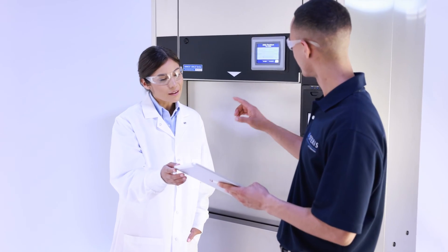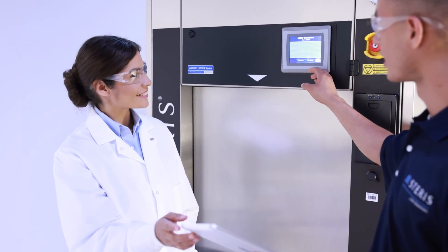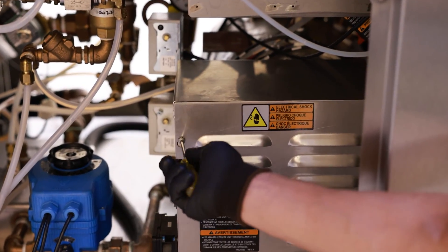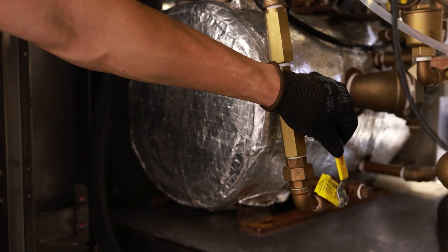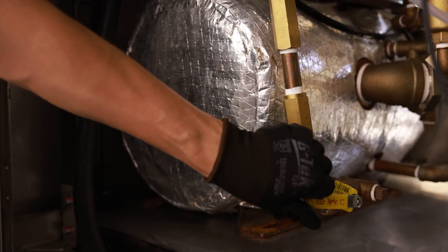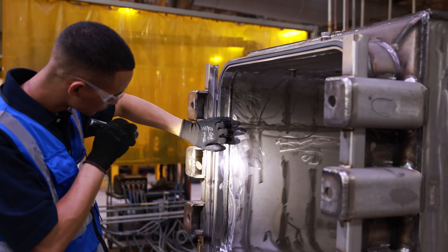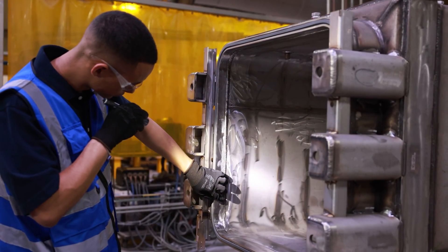Take advantage of Steris' global service specialist team for scheduled preventative maintenance along with support for any unscheduled needs. With access to a broad inventory of OEM parts and around-the-clock technical support, Steris is dedicated to delivering exceptional service to maximize uptime use of your equipment.